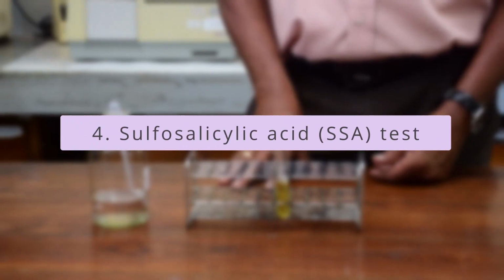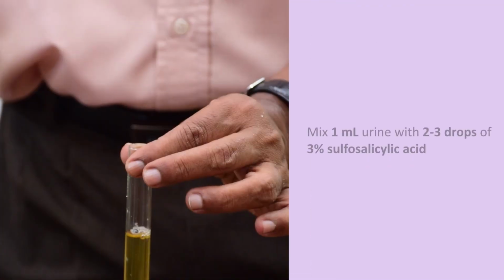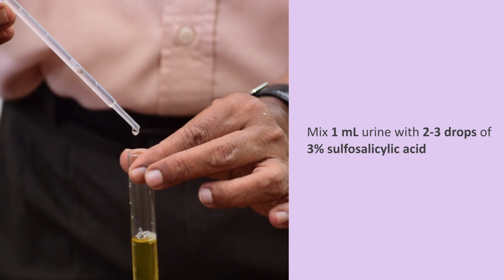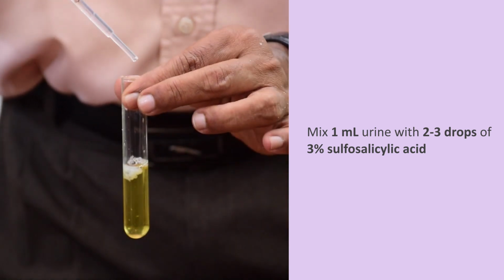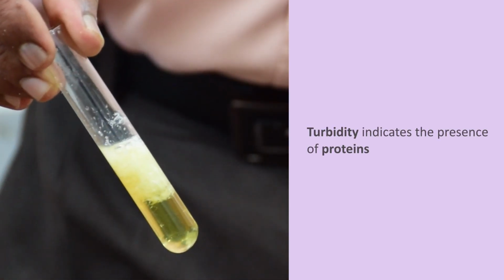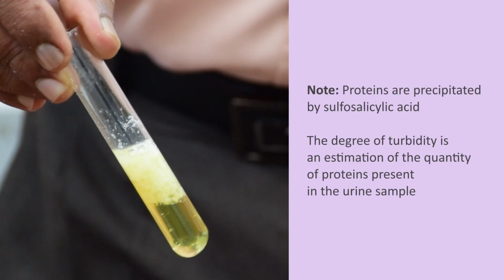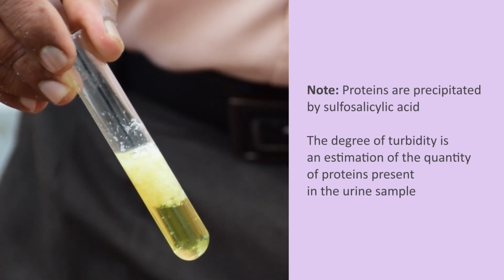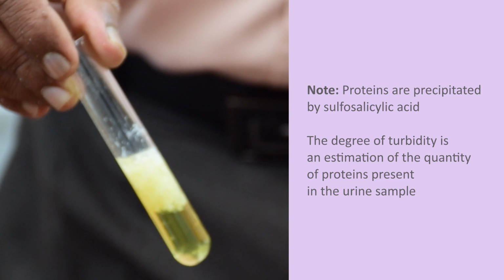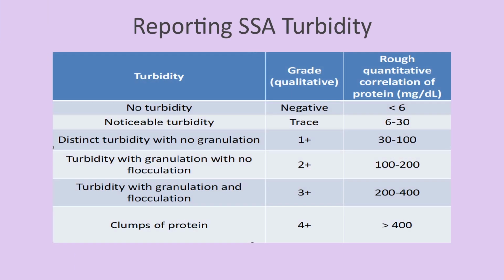Another test to detect proteins in urine is the sulfosalicylic acid test. This test is performed by mixing 1 ml of centrifuged urine with 2 to 3 drops of 3% sulfosalicylic acid. Turbidity indicates presence of proteins. The degree of turbidity is an estimation of the quantity of proteins present in the urine sample. This chart shows the degree of turbidity.